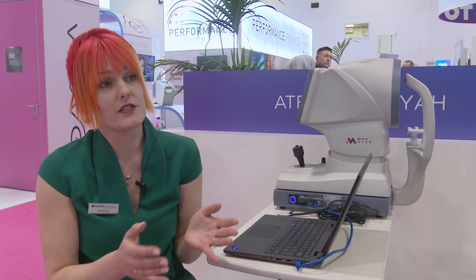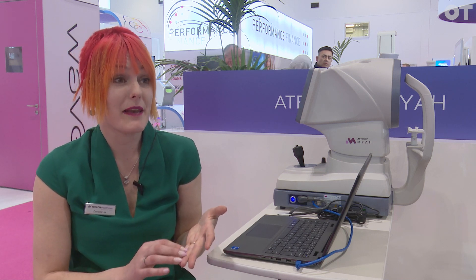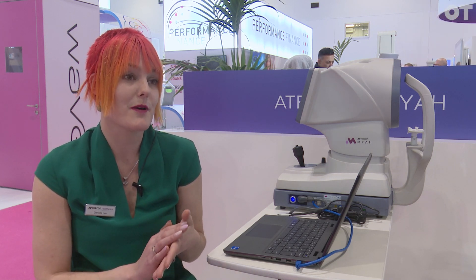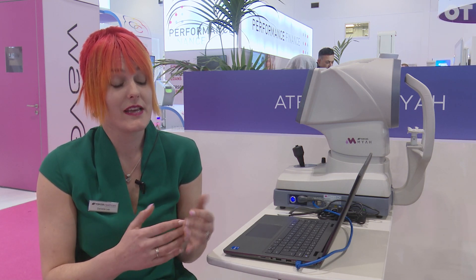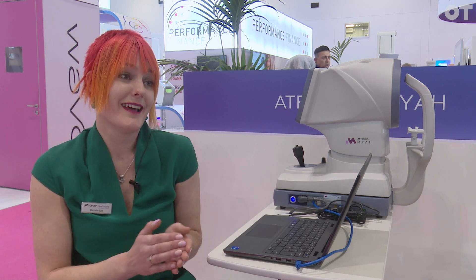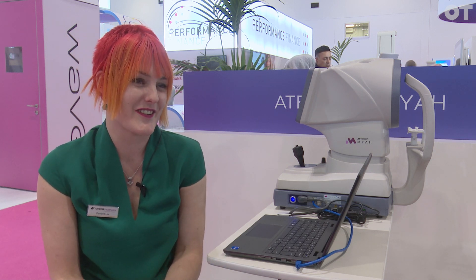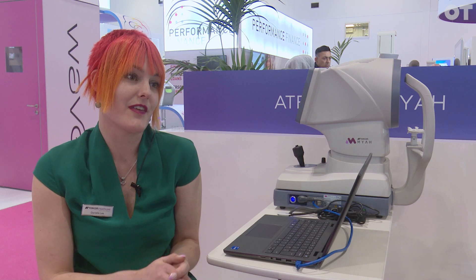We also have a suite of dry eye functionality: tear breakup time, non-invasive tear breakup time, blink analysis, tear meniscus height, and meibomian gland imaging that allow us to quantify loss. That all pulls out to a dry eye report, which can help increase compliance. We know that not everyone's particularly compliant with their dry eye treatments, so being able to give figures can really help with that as well.